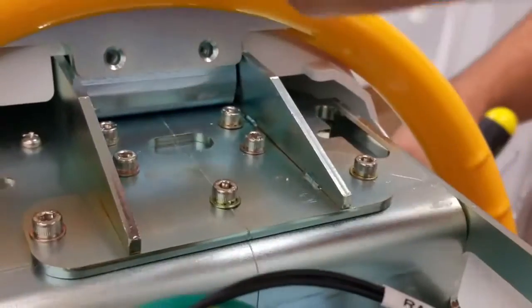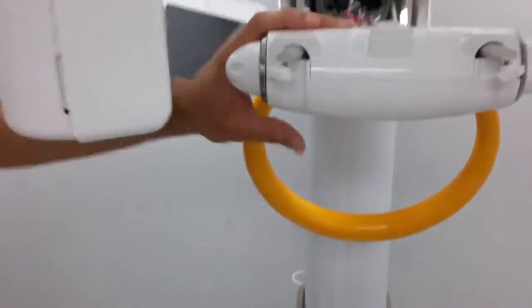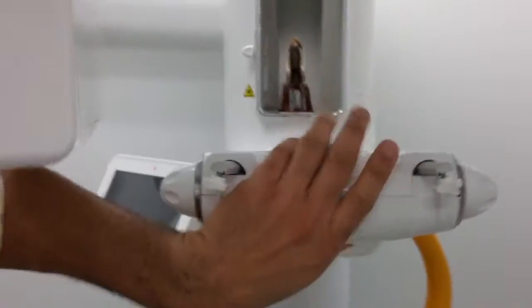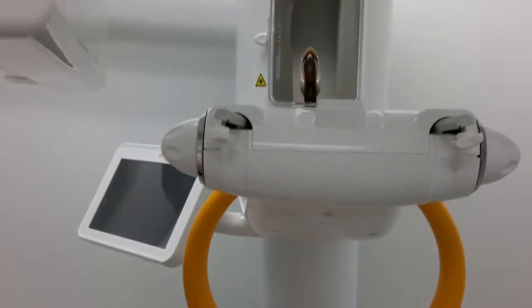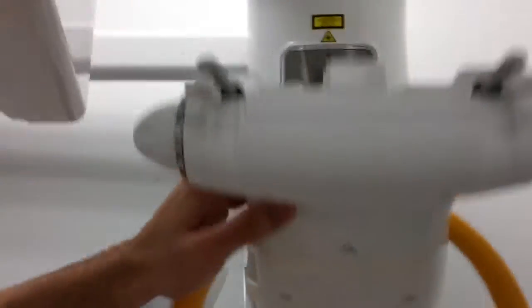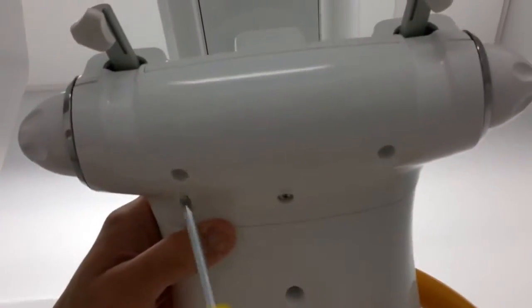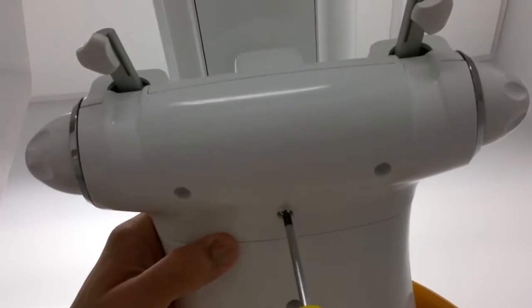In order to get to three more screws that are mounting on the inside, we must remove the top plate and the bottom plate on the front of the generator. We've got screws here, one, two, and three.